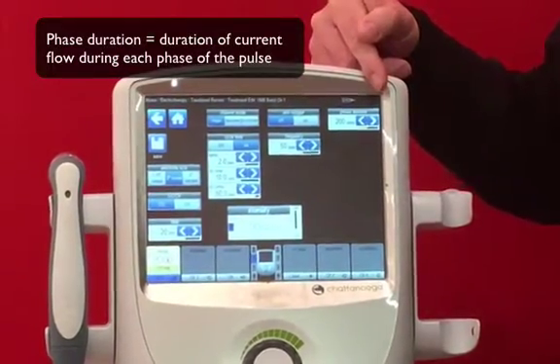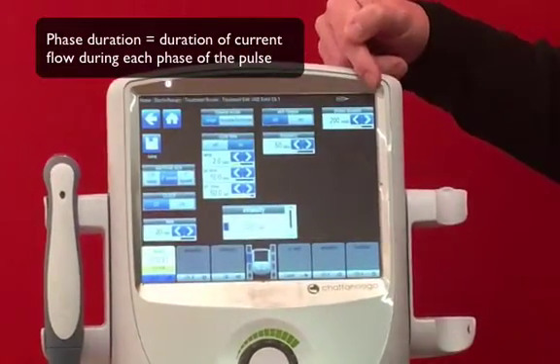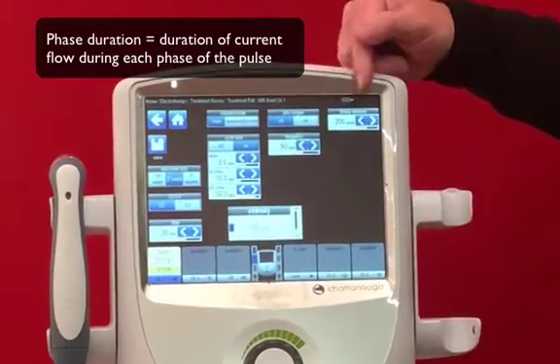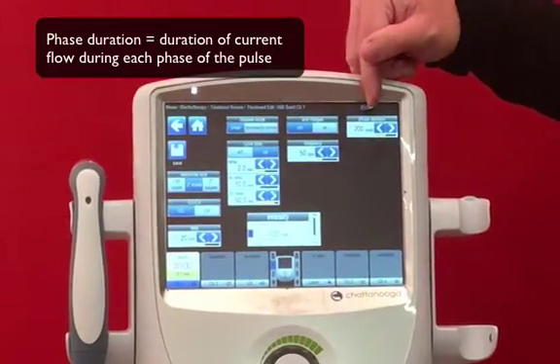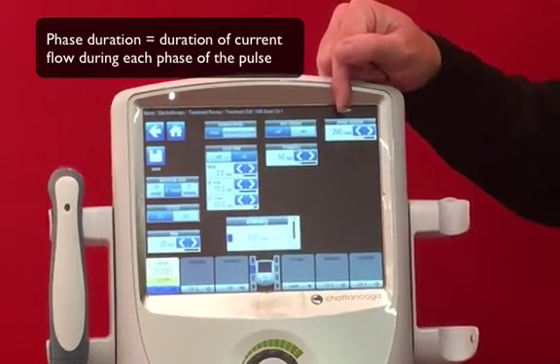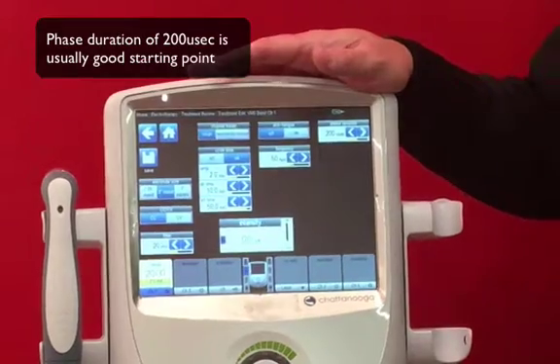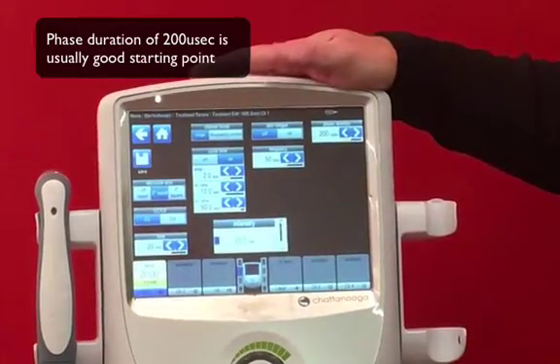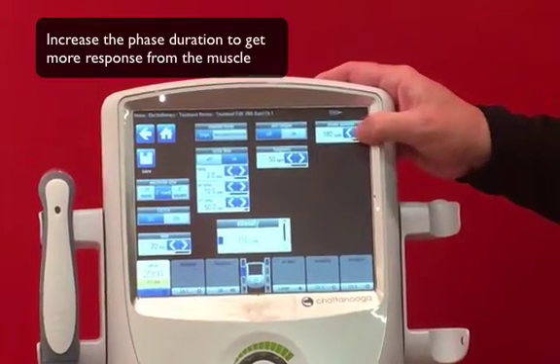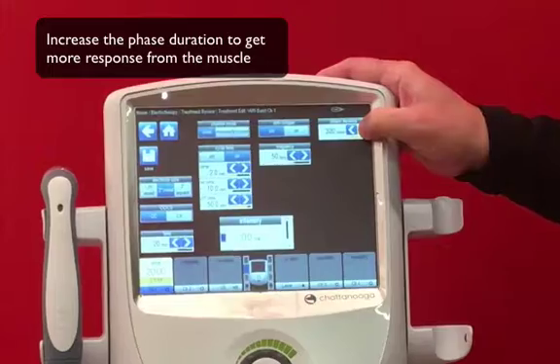The first parameter is phase duration — the length of time that a particular phase, either the positive or the negative, or the equivalency of that in a Russian waveform, is actually active. It defaults to 200 because it's not too high and not too low; it will reach most muscles for what we're trying to accomplish. If we have a stubborn muscle or nerve, we can increase the phase duration all the way up to 400.